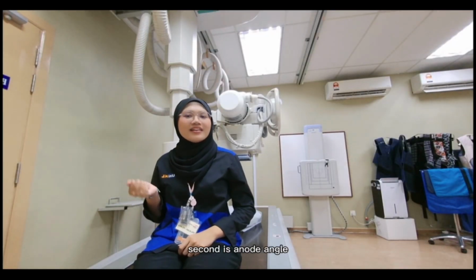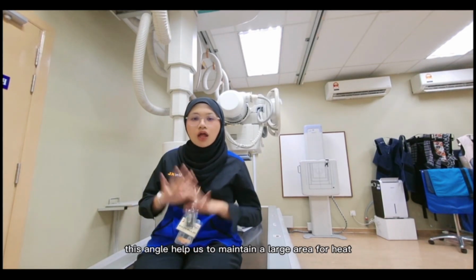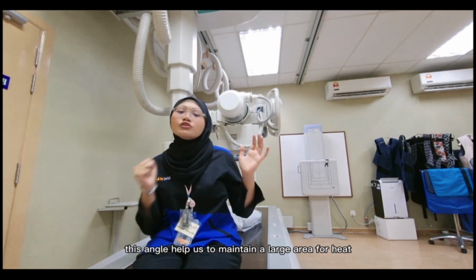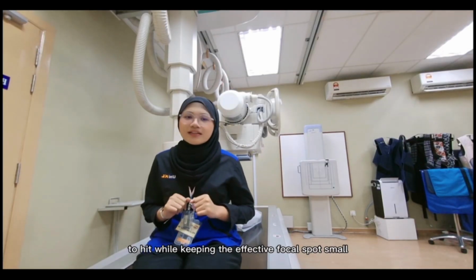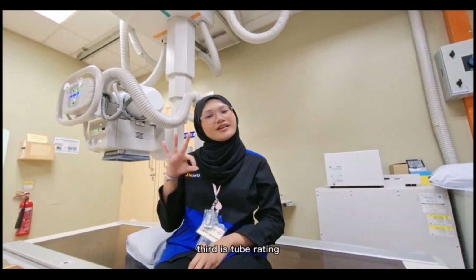Second is anode angle. This angle helps us maintain a large area for heat to hit while keeping the effective focal spot small for better resolution. Third is tube rating.